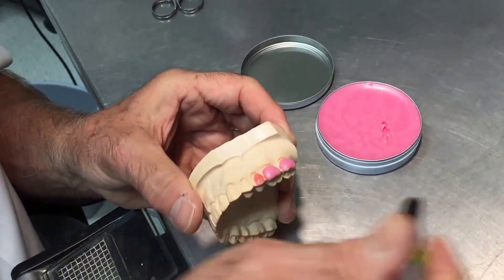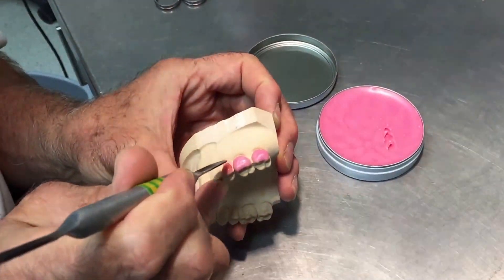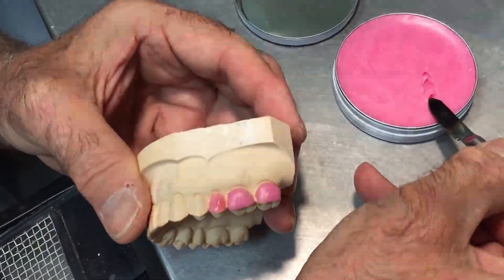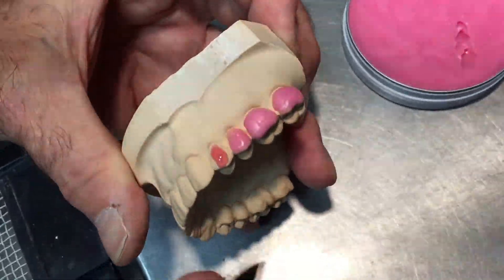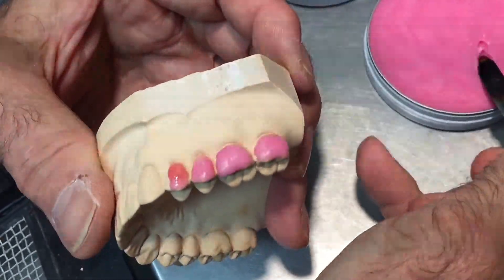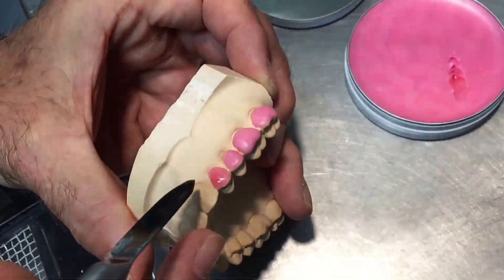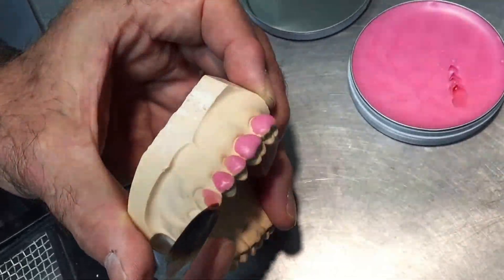What we're trying to do here is prevent damage to the oral mucosa. Many of you will have seen the aggravated appearance of soft tissue when this chemical is held against it for any period of time. By making the reservoir not join between the teeth and keeping it just short of the gingiva, we minimize the amount of active chemical held against the gingiva. A lot of patients don't take heed of the instructions — if one minute makes their teeth whiter by half a shade, they might think sleeping in the guard for 24 hours would do even better.